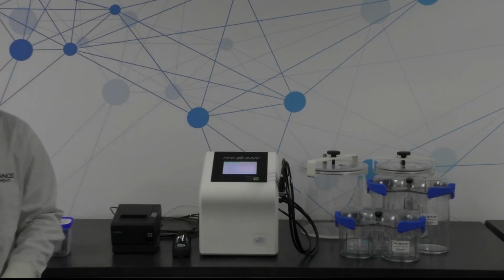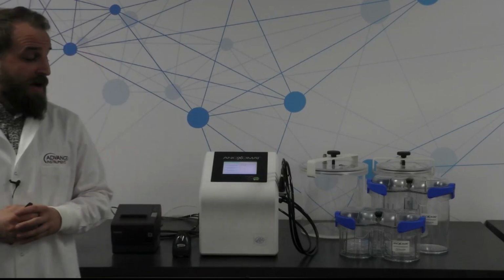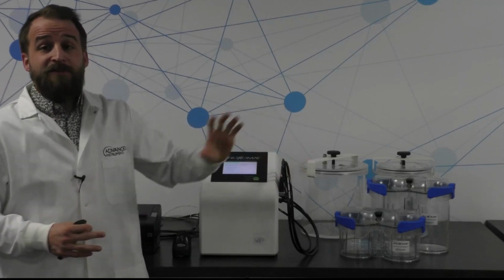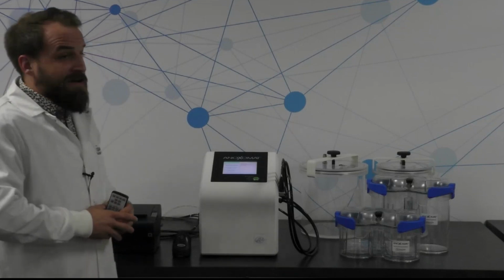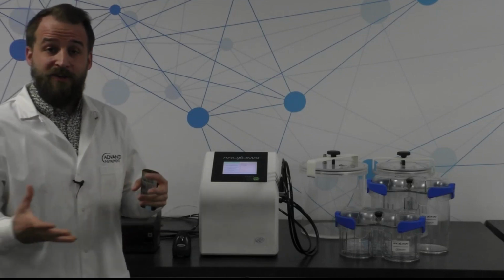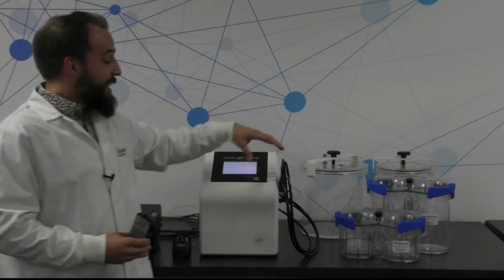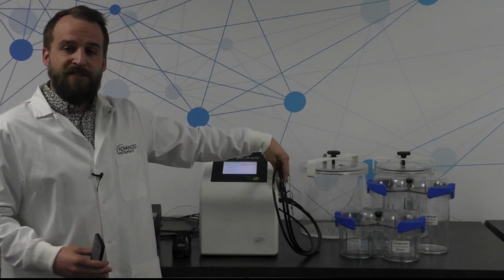So with that said, that's the overview of the instrument as a whole. I will say also, and I'll show you how these hook up, that you can accommodate up to 4 jar hookups over here. So if you have a really busy anaerobic workflow, maybe you're performing a lot of those cultures from your orthopedic cases to rule out Cutibacterium acnes growth, and you have several plates that you're loading into multiple jars all at once, you can connect up to 4 jars at once with these hoses on the side.